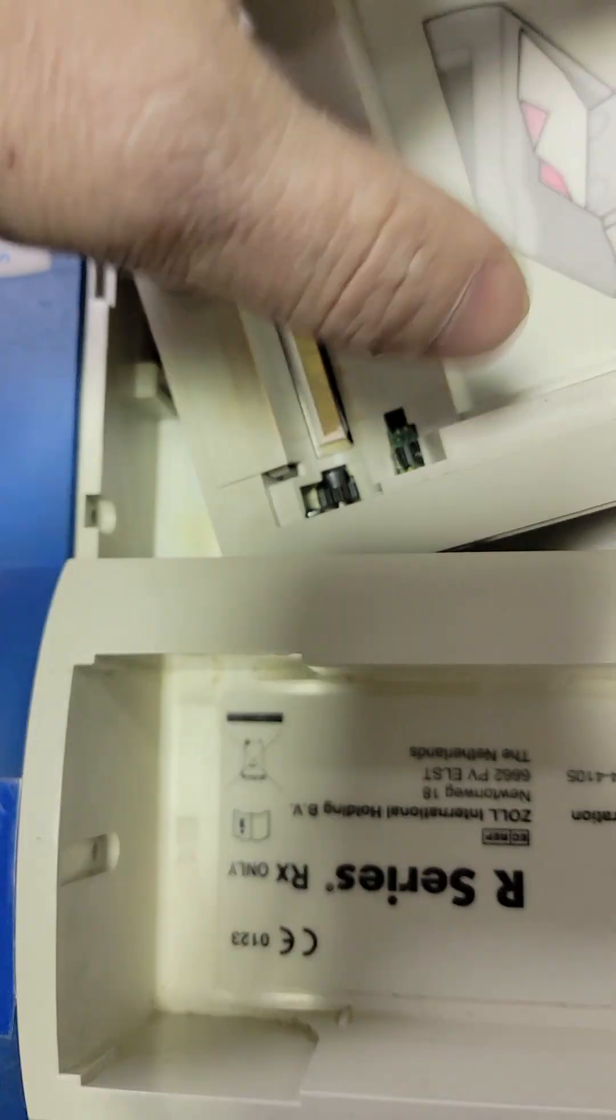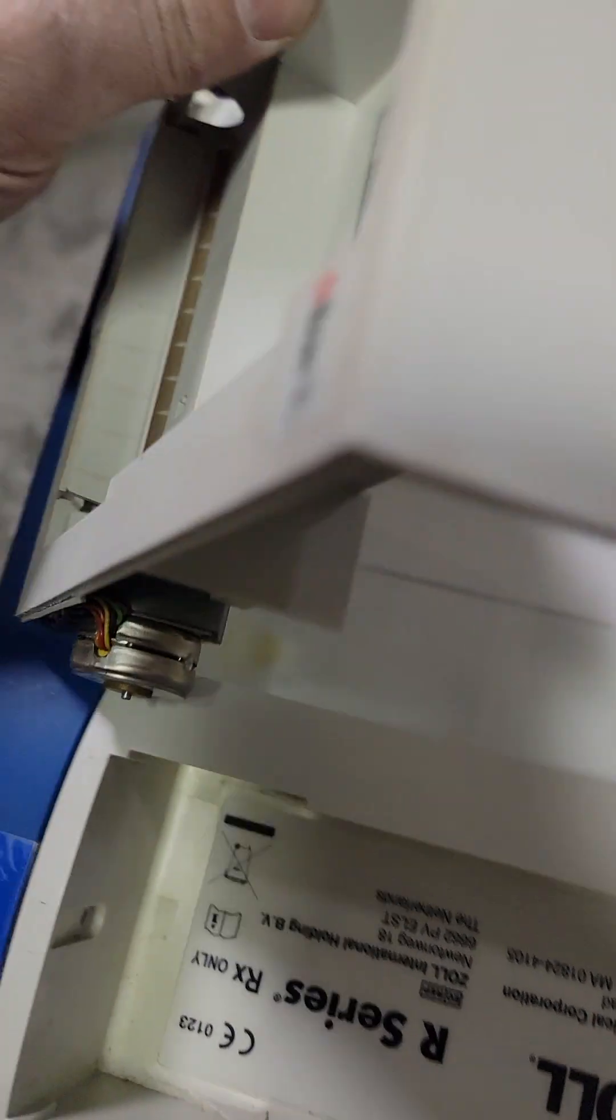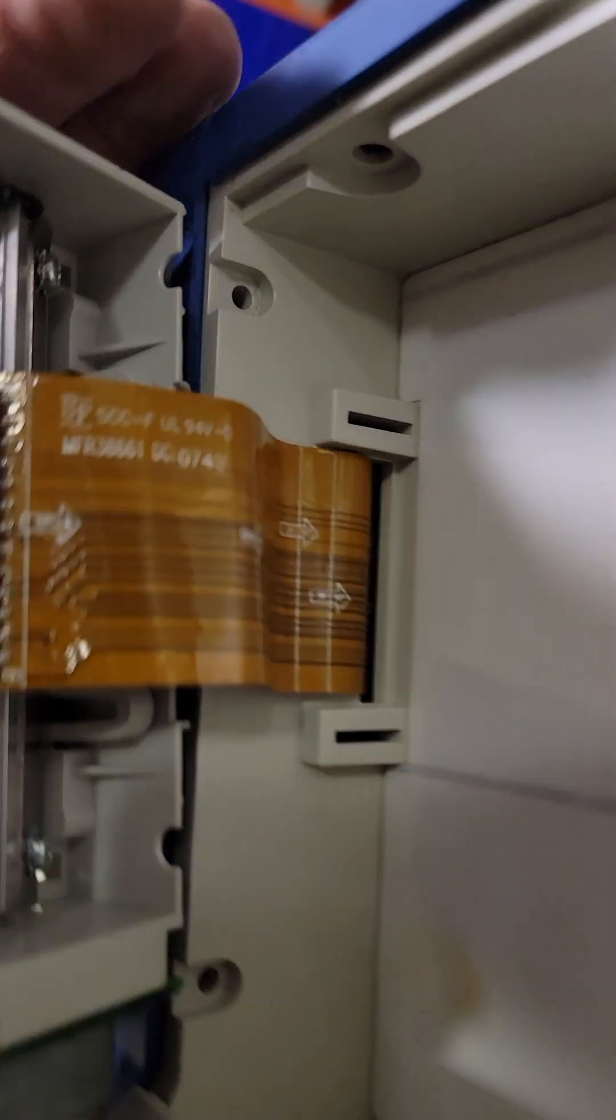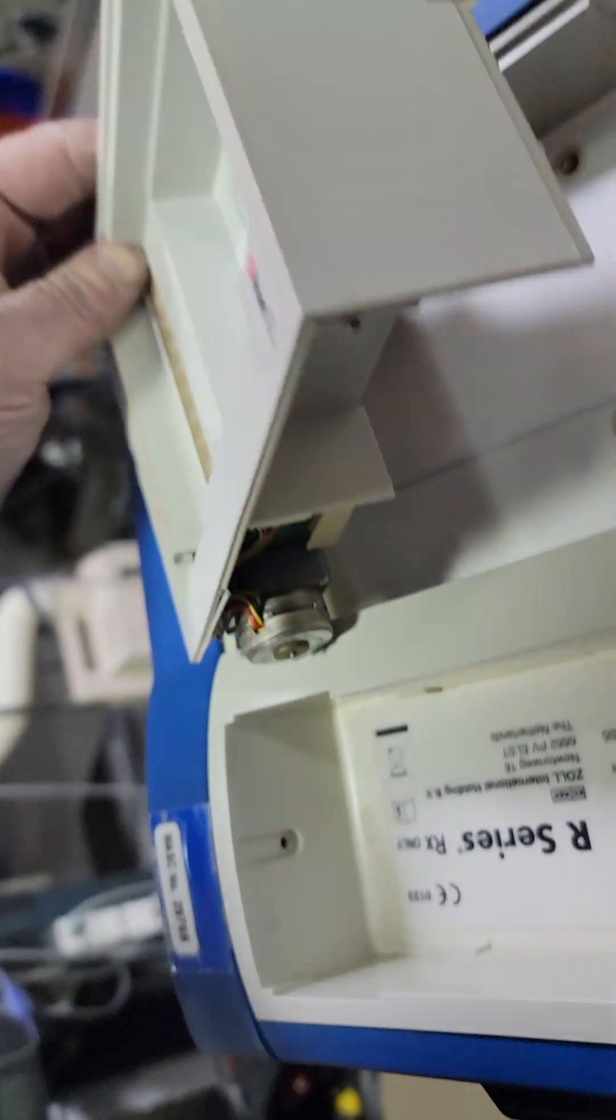Printer motor, you've got to be careful. It's enough length, it's just out of the way so you can get underneath to get this screw and this screw without having to disconnect anything.